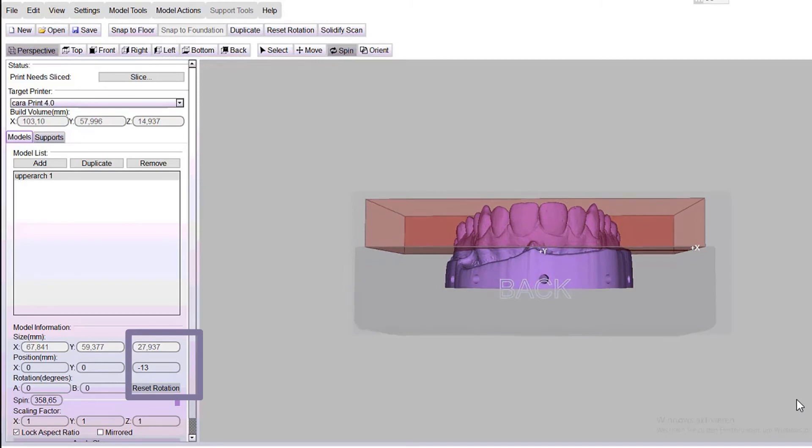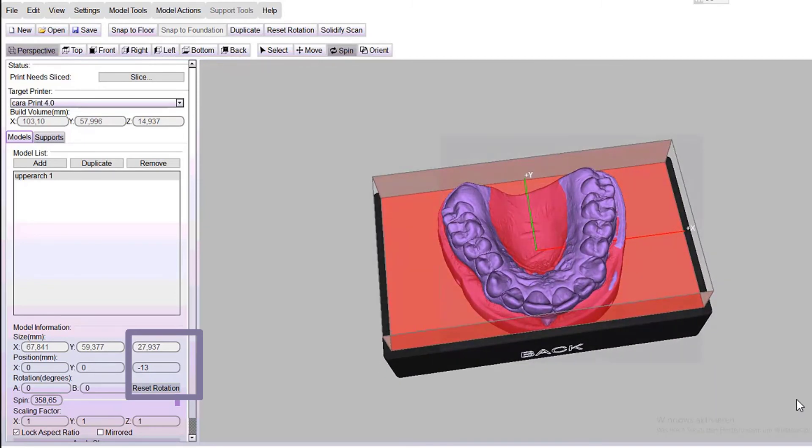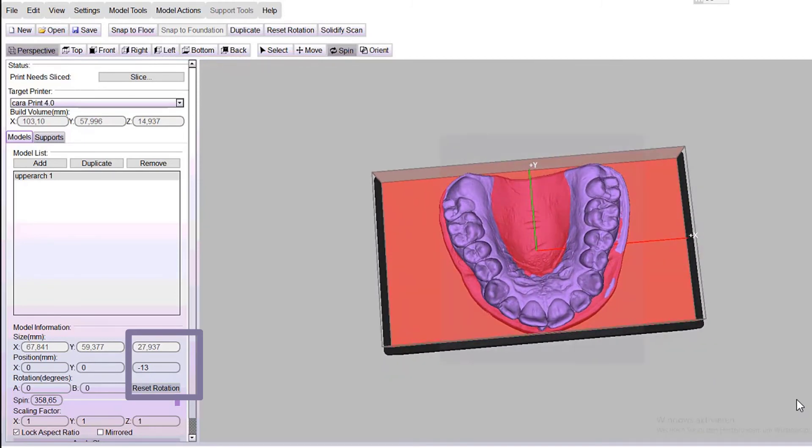Up to four models can be printed by setup at an angle of 90 degrees in the minus area.